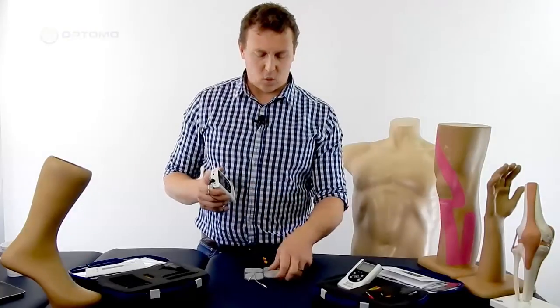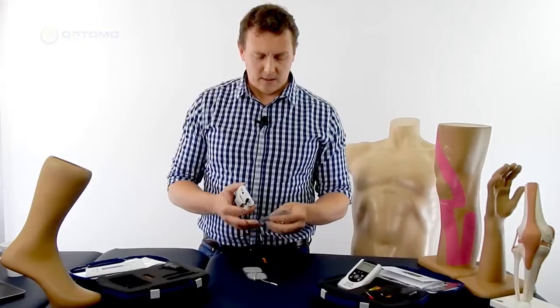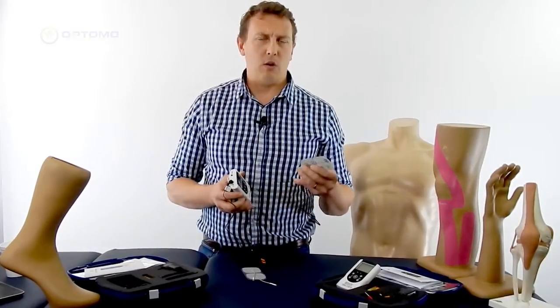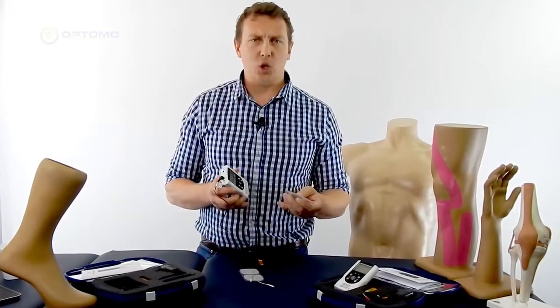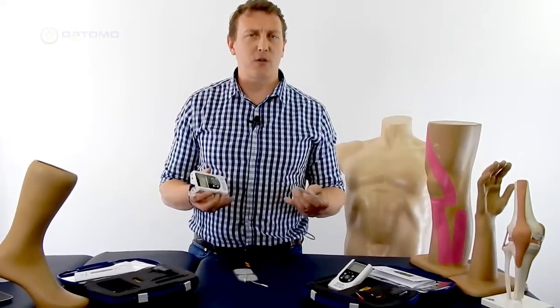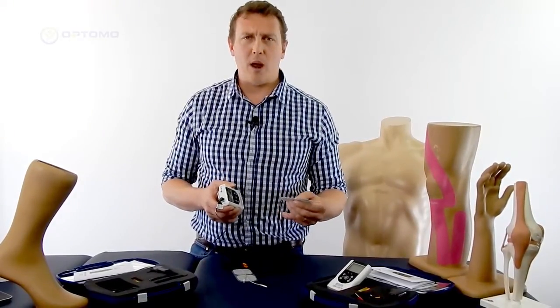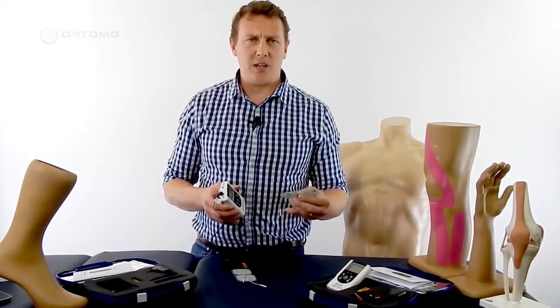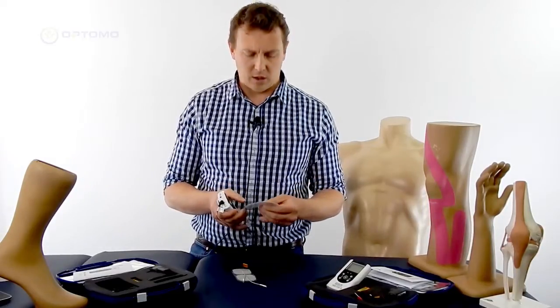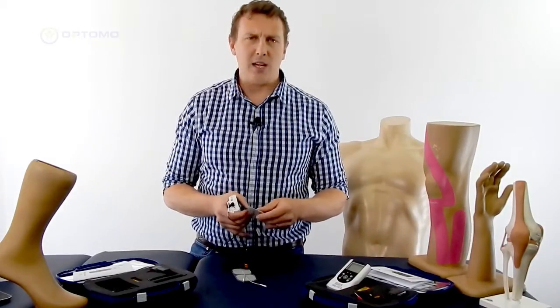In this video we're going to talk a little bit about electrode placement. In other videos we've talked about how you use a TENS machine, how you use a muscle stim, and the difference between both. One of the most important parameters in achieving success with these therapies is the placement of electrodes.